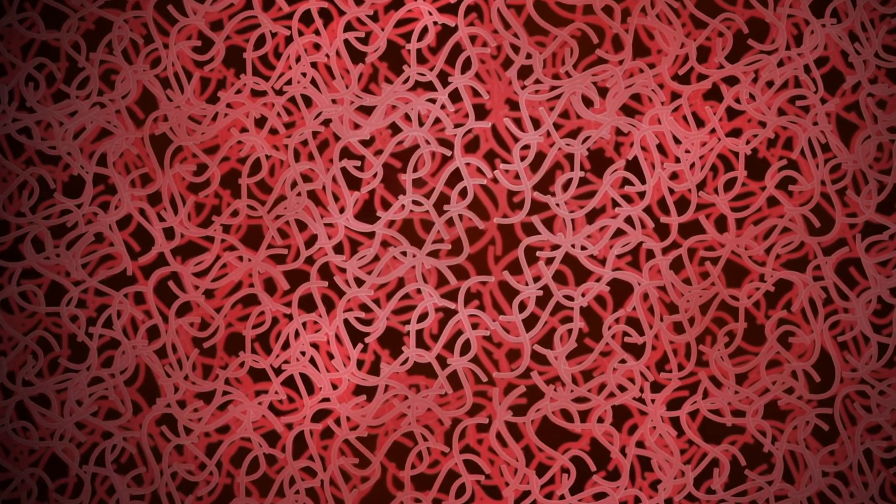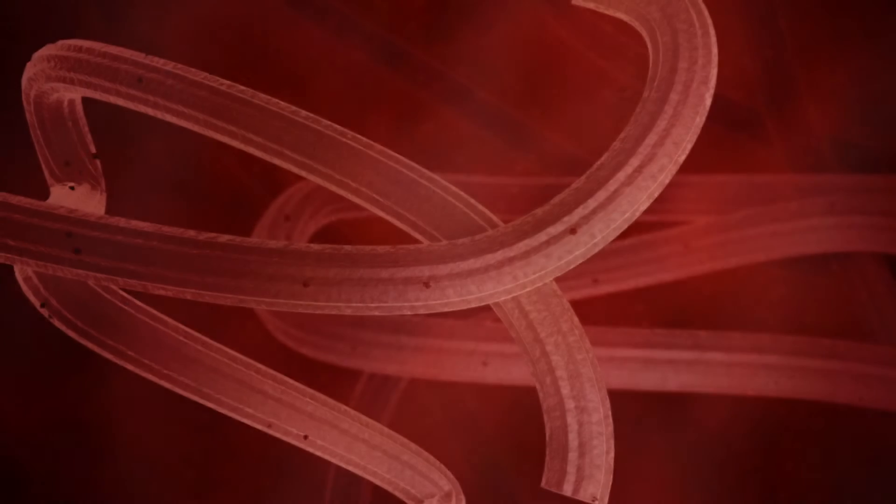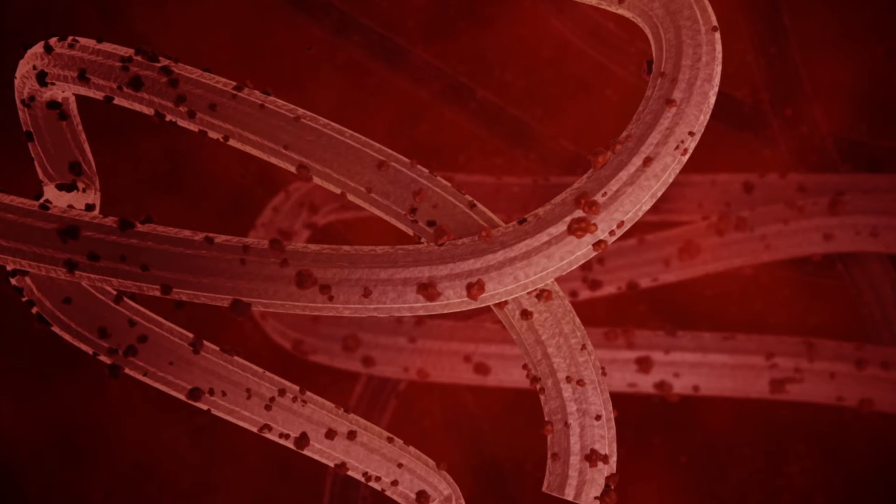As the fabric becomes saturated with blood, platelets and other blood proteins adhere to and aggregate within the ORC matrix, initiating clot formation.